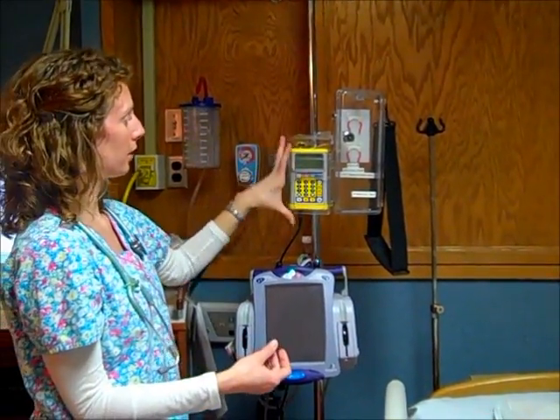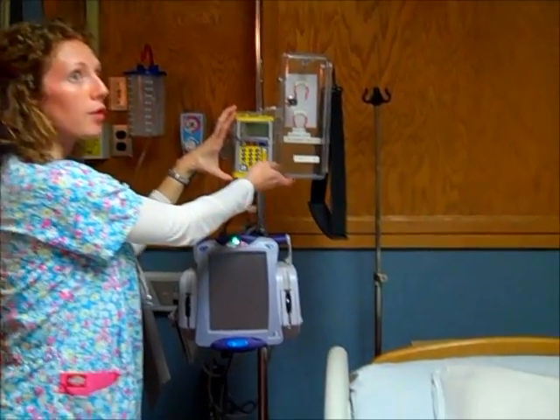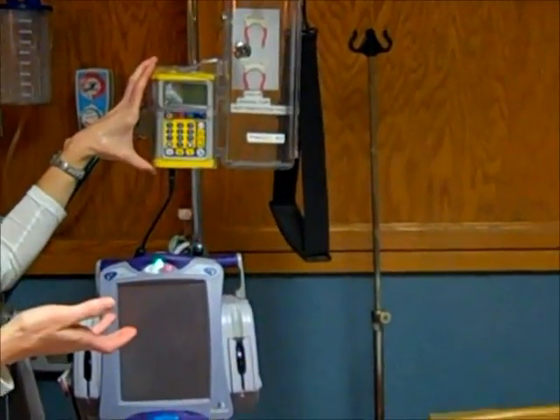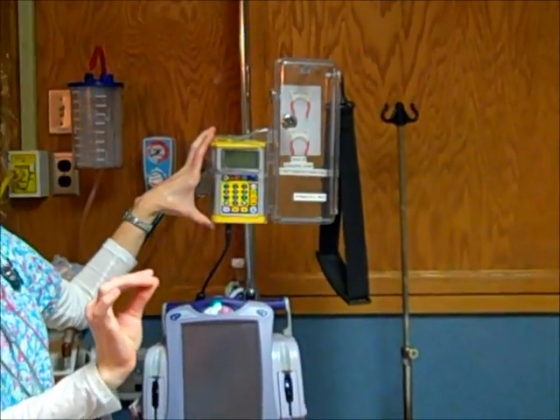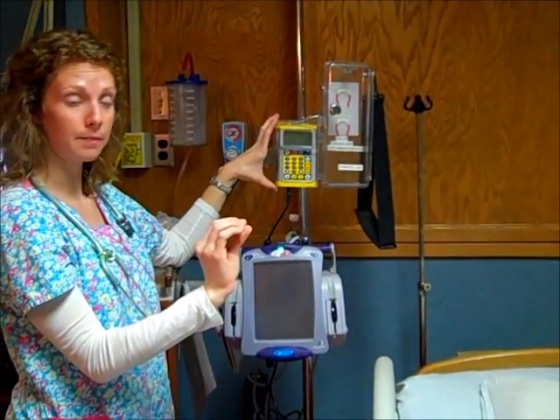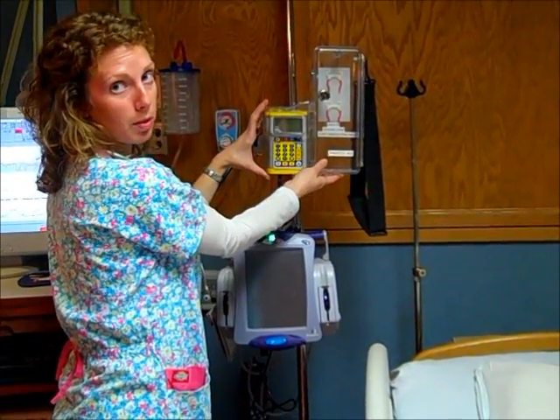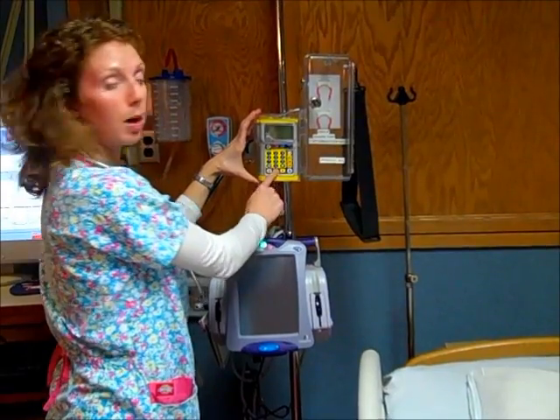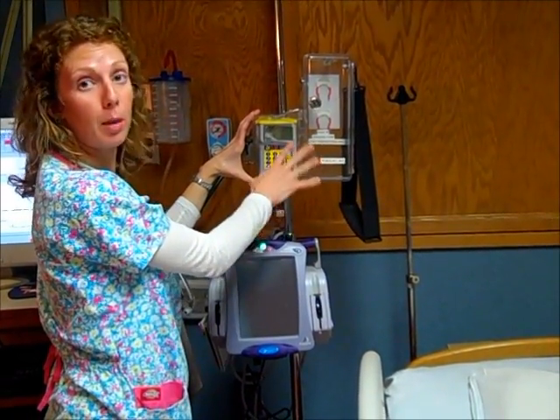And another thing you might see is something called an epidural pump. So one of the options that patients have for pain control is an epidural, and it's a catheter that goes into the spine, and there's going to be a medicine that would be running through here. In our case, it would be ropivacaine. So you might see this pump, your nurse programming this to make sure that they're getting the correct epidural dose.